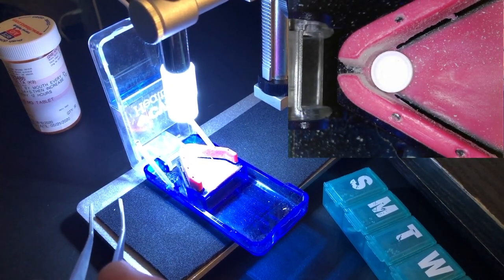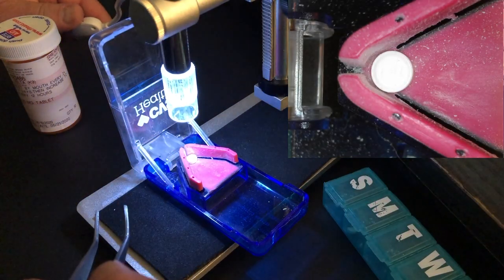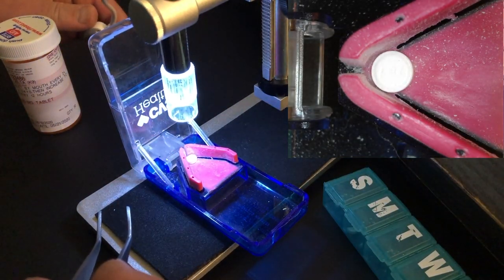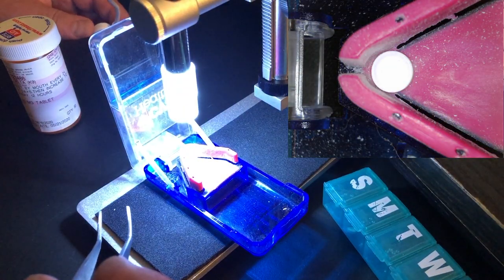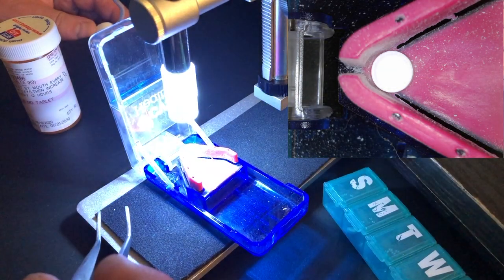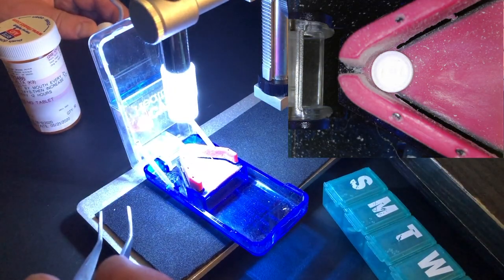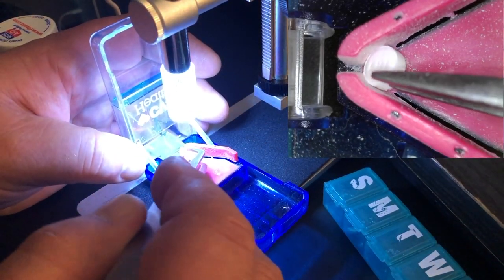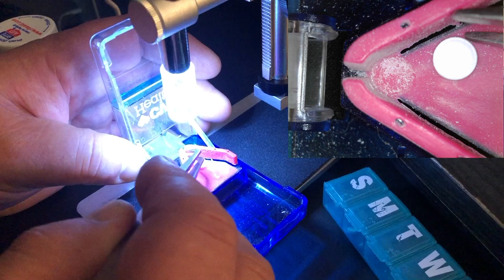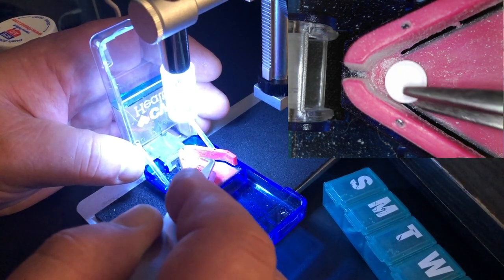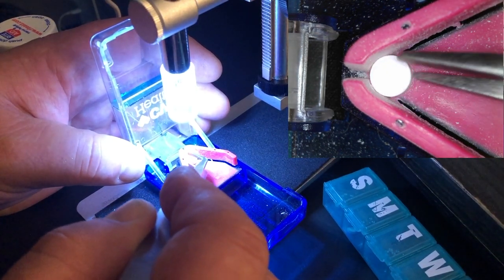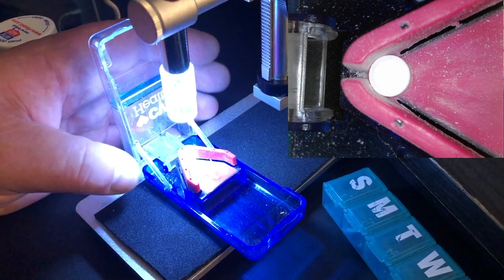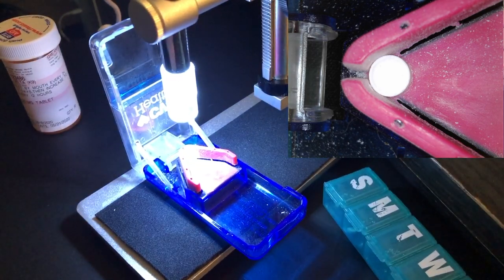The contrast is a little bad here because it's a white pill and hard to film. Well, never mind the numbering on there. If you cut across all numbers, it will break uneven. You have to put the pill in here in the way that you cut in between those numbers. That makes the most even cut. Let me show this to you.